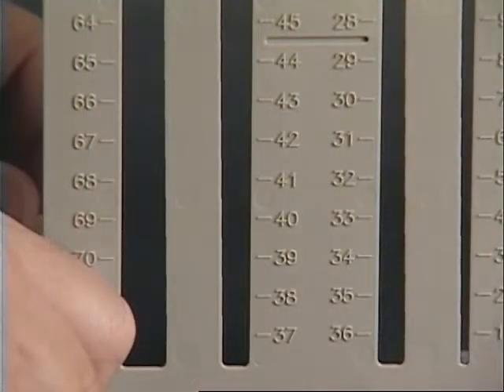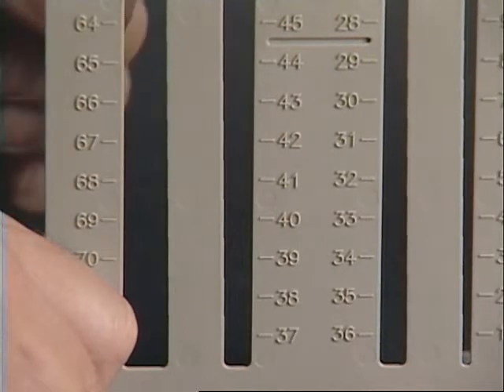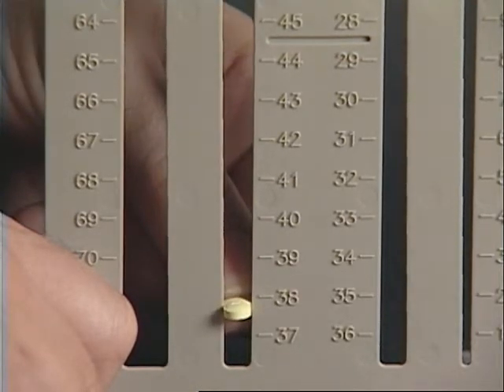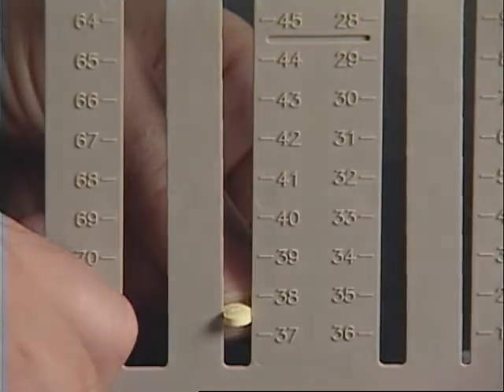We need a third measurement only for the caplets and the elliptical tablets. We need the measurement of the flat edge. Insert the flat edge into the measuring device. Proceed down until it stops. The flat edge of this elliptical tablet is a 38.